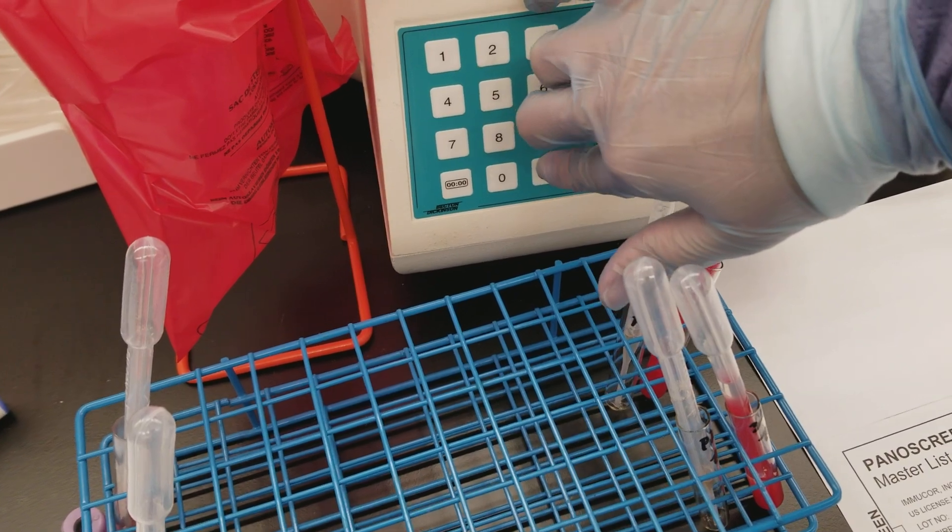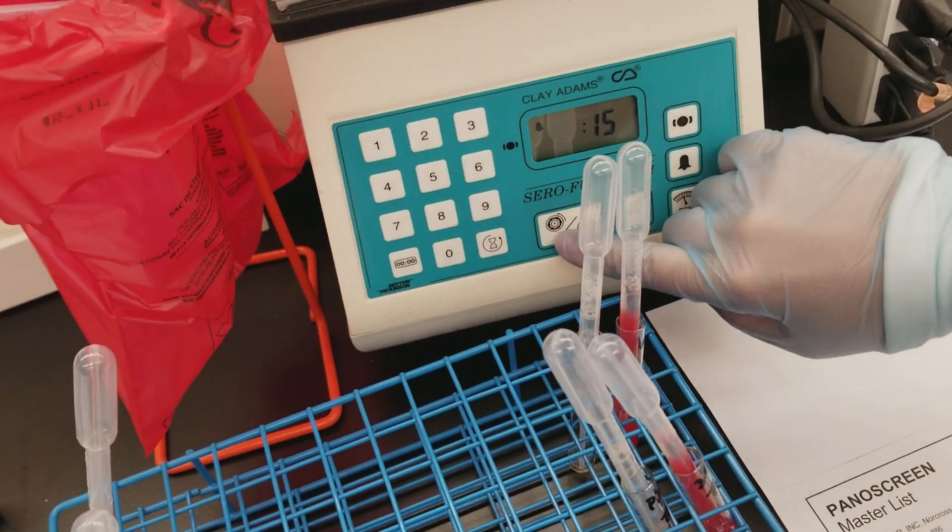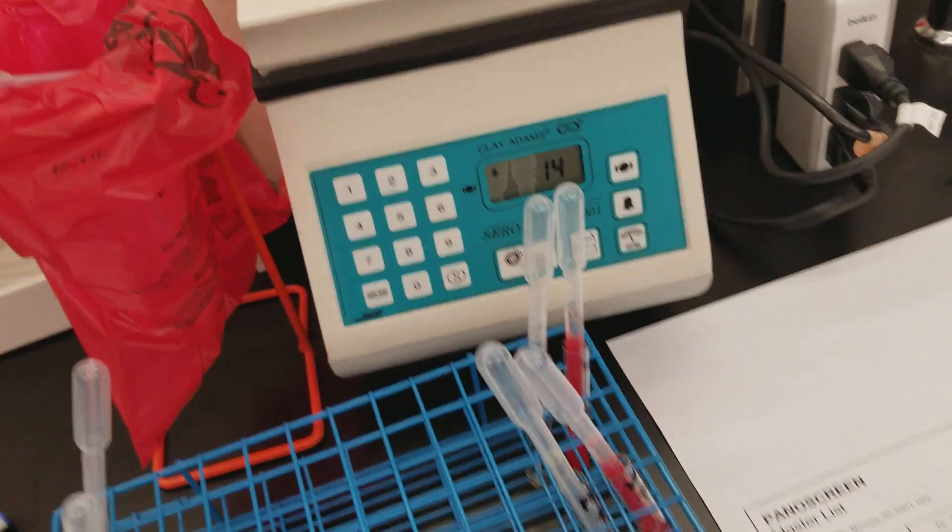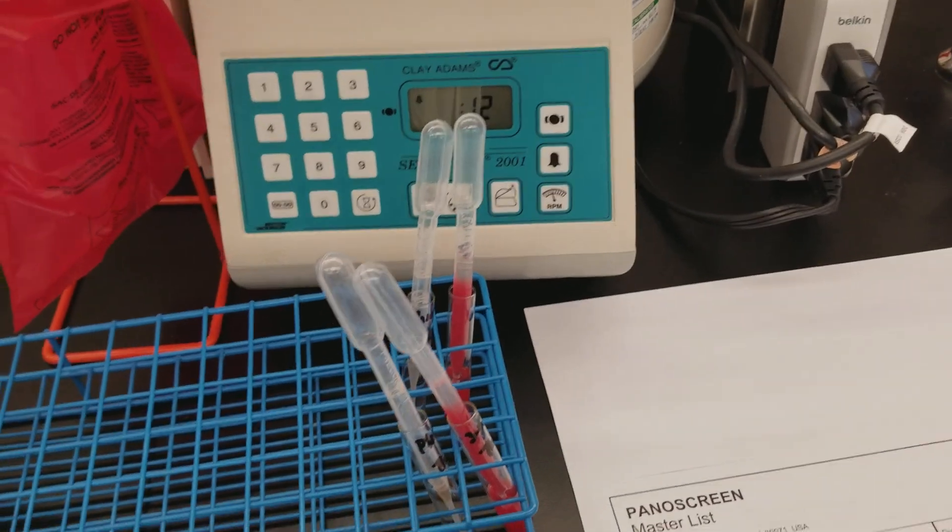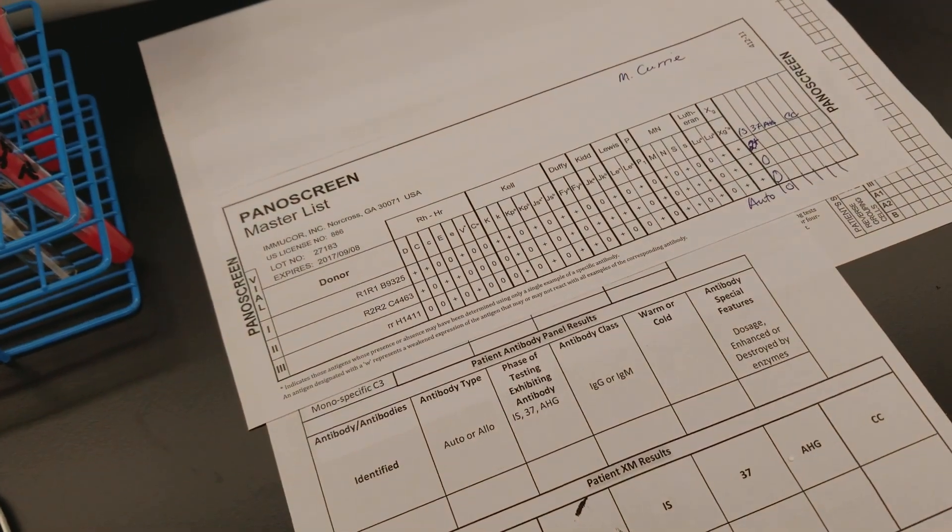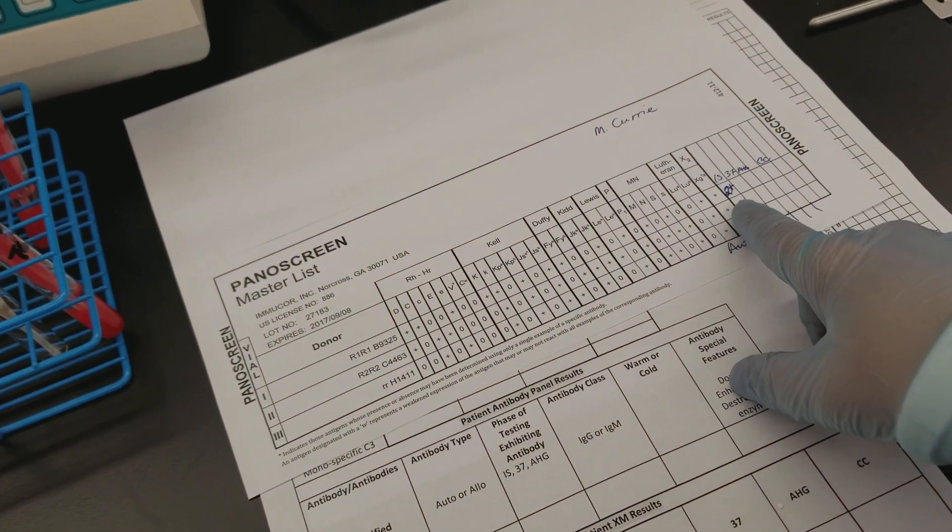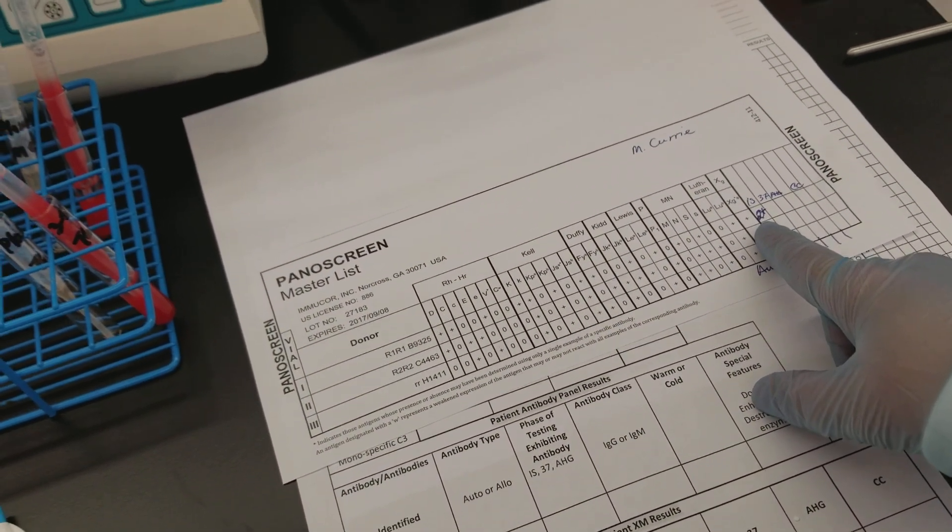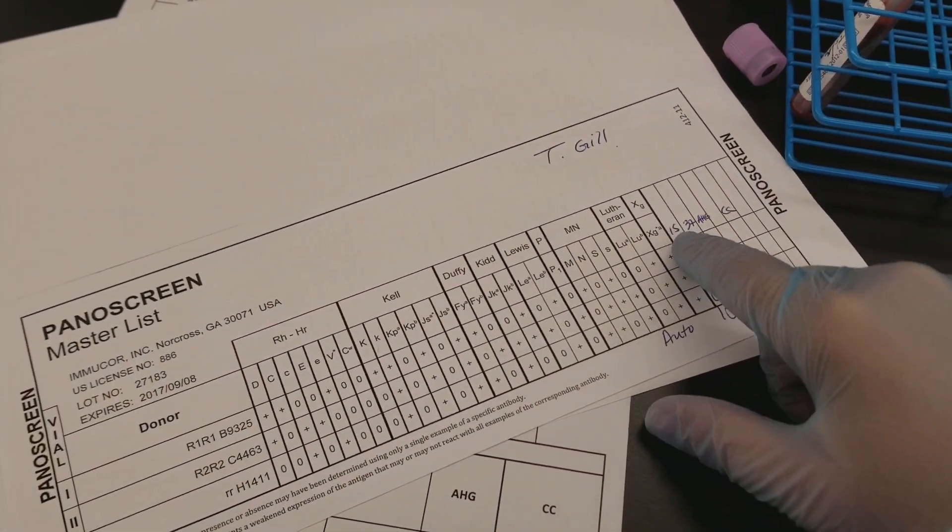So right now we're doing both patients - one that should have an antibody that I added to the patient to make it positive, and one that is continuing to be negative.